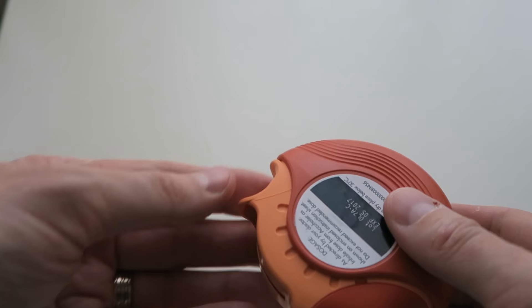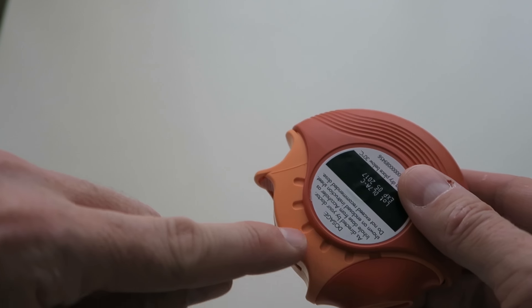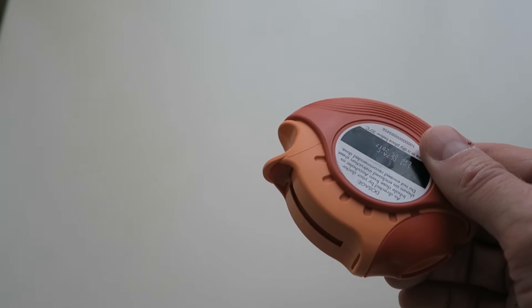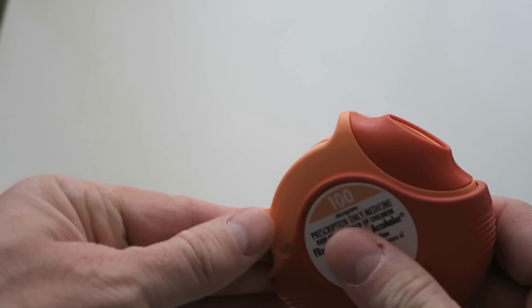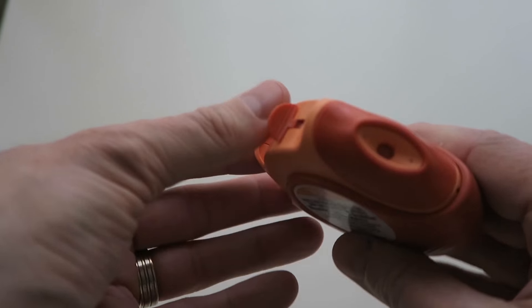Now one thing to note before I crack this open is that when everything's opened up, you've got these little markings along here, sort of like little dug out bits on the plastic. So we'll have a look and see what that actually means when it's on the inside.